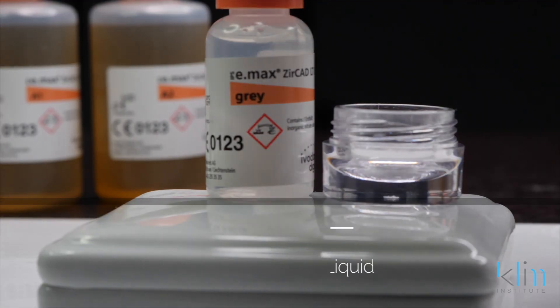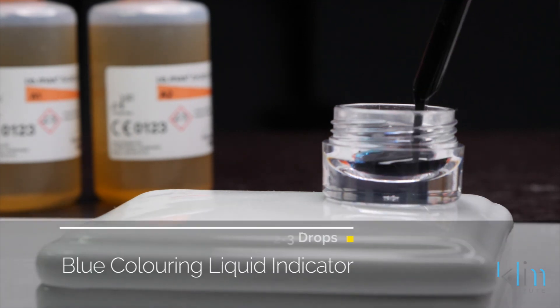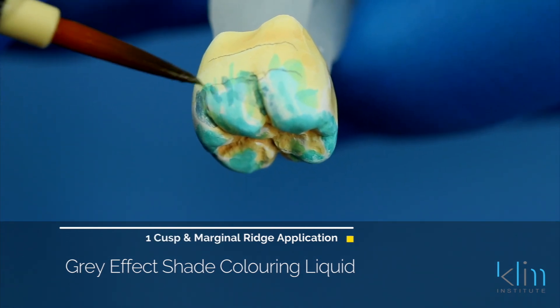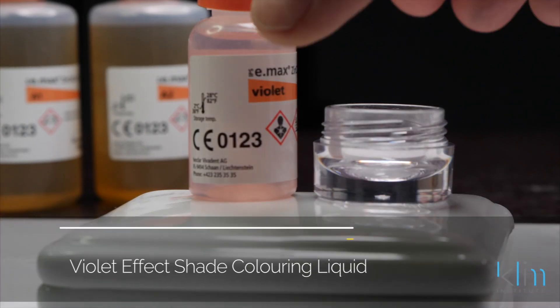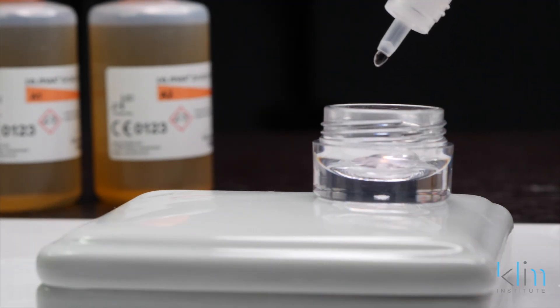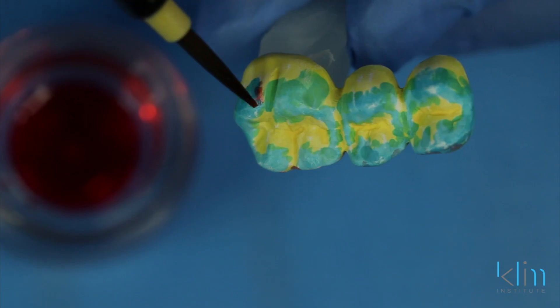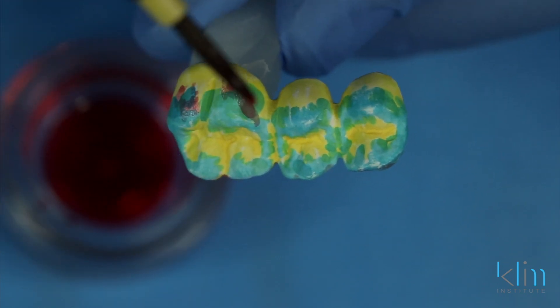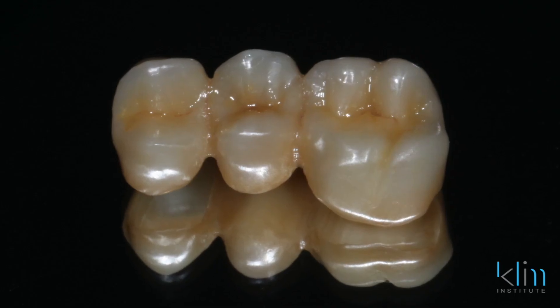The way I manage the gray coloring liquid is I'm going to place a drop of red and a drop of blue — that's purple. Gray is applied between the blue applications just to create more of a translucency effect. With violet, I use it very sparingly to tone down the cusp: 25 drops of violet in the jar with two drops of red — yes, that will look violet. The violet is the last application I use when I'm using the combo of the three incisal effects on the cusp. I'll use it carefully along the line angles to create that illusion of translucency.